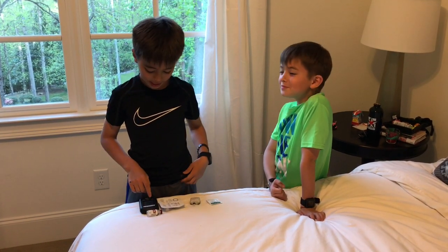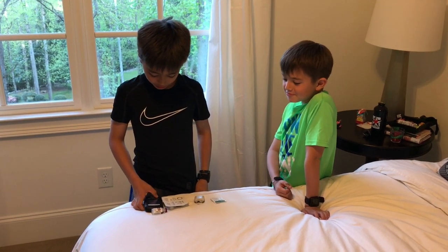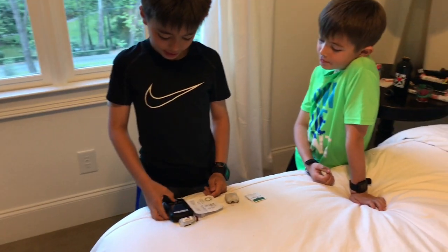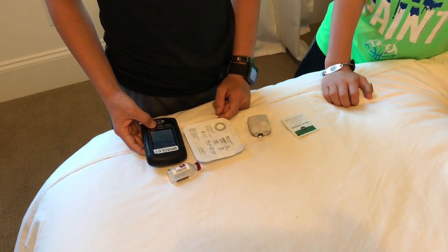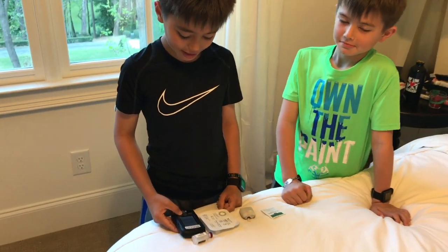First, you go to the PDM. You hit home, go down to more actions, hit change pod. It says no active pod — would you like to activate a pod now? You hit yes.